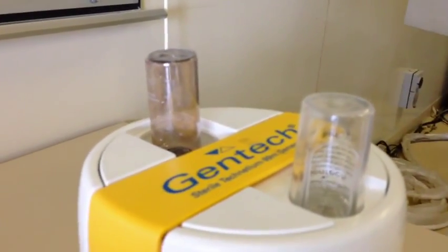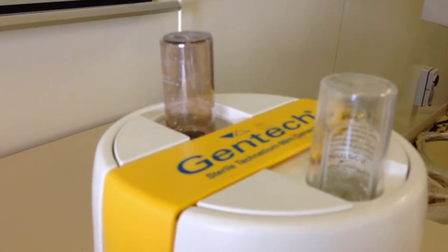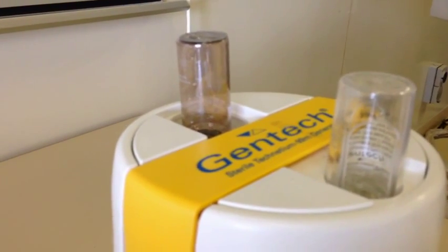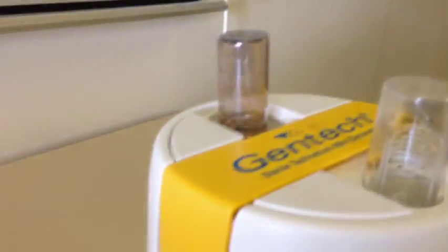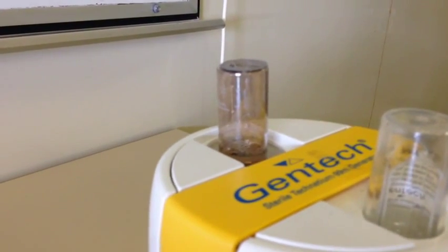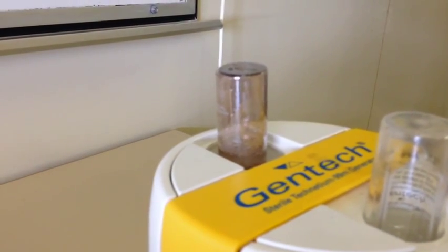and as our saline on the right side there starts to reduce, and it's almost gone there now, it'll actually start to draw air through. And then you'll see on the other side here, a fairly vigorous bubbling of air as it comes through and air dries the system.